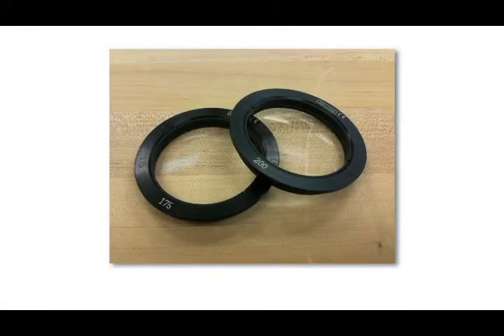Occasionally, it may be necessary to replace the condensing lens of the Merlin CLA. For example, you may currently have a microscope with a 175mm objective lens but will soon be changing to a microscope with a 200mm objective lens. In such a case, your CLA with a 175mm condensing lens could be replaced with a 200mm condensing lens instead of replacing the entire CLA.